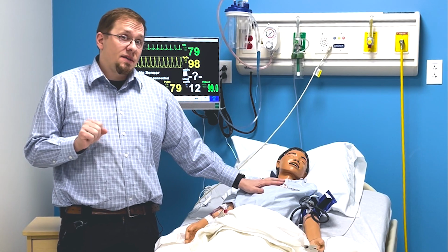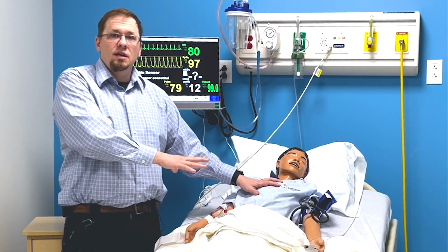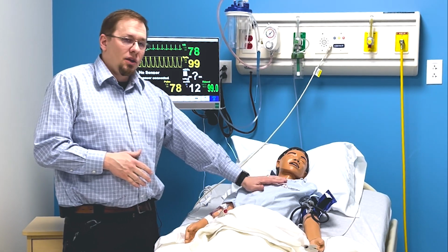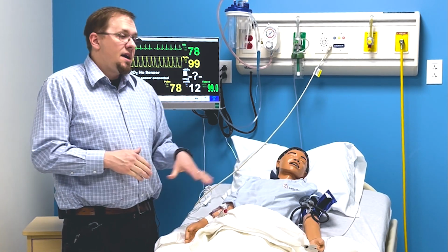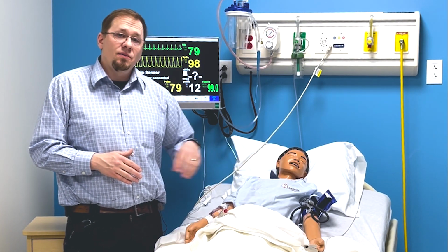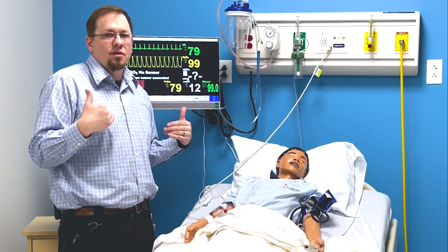If I want to know whether this patient is breathing or not, I'm going to look for chest rise and fall. I'm going to talk to the patient just like a real patient, and they're going to talk to me if they're alert and oriented, okay? So I can look for those level of consciousness indicators, look to whether they're breathing, listen to whether they're breathing, and things like that. As far as lung sounds on this mannequin, they've got lung sounds all over the front of the chest here where you'd normally listen. Make good connection with your stethoscope and you should hear it. If normally you would listen on the back, this mannequin doesn't have posterior lung sounds.